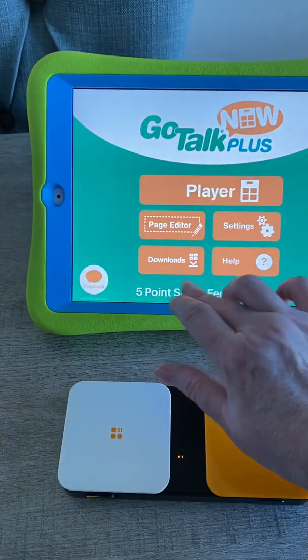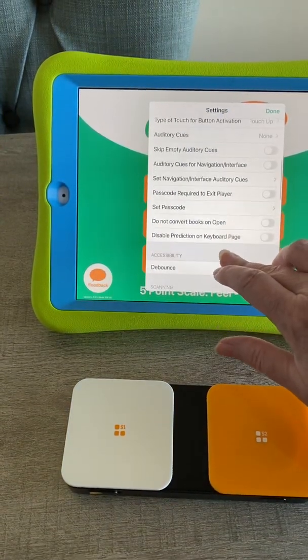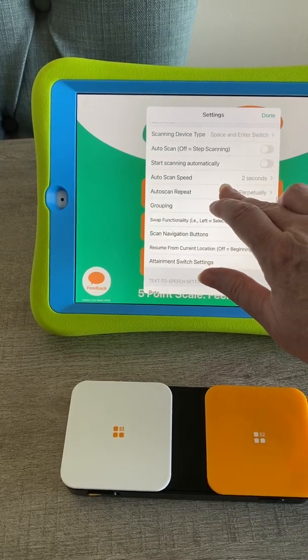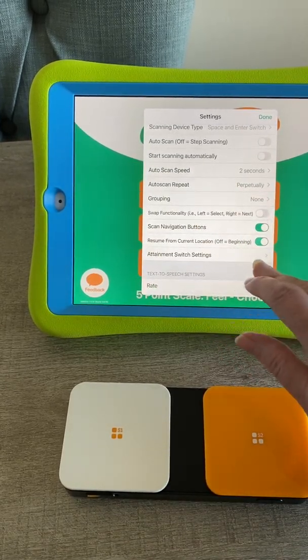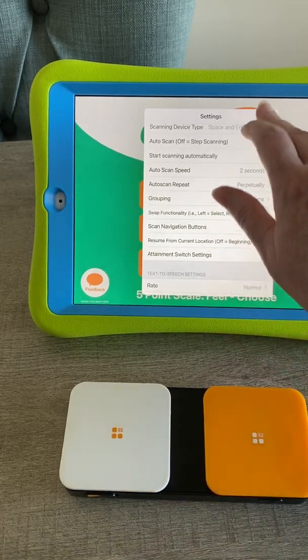I'm going to set this one to be where I left off, because it would be frustrating to have to restart every time. So I'll select 'Resume from where I left off,' then Done.